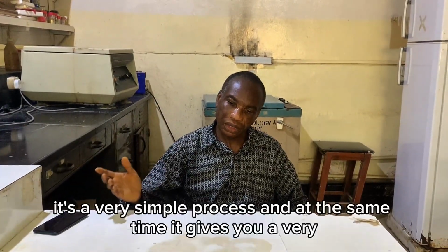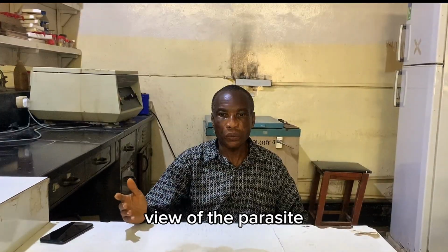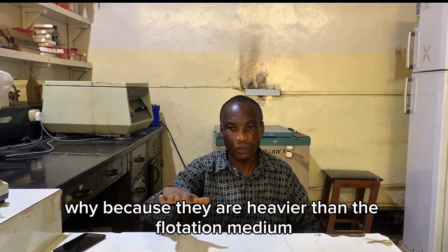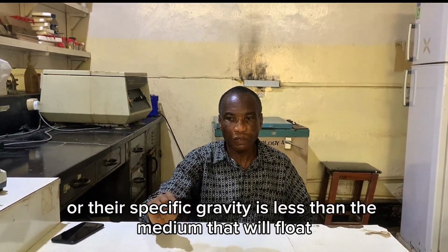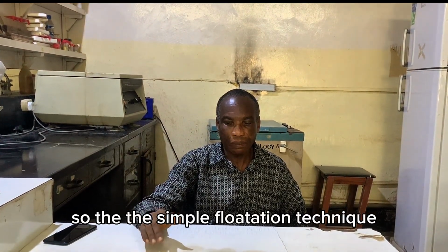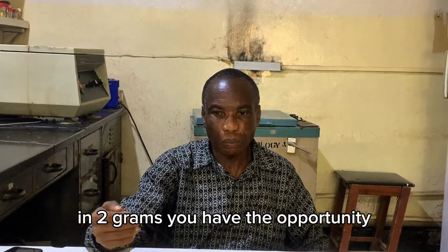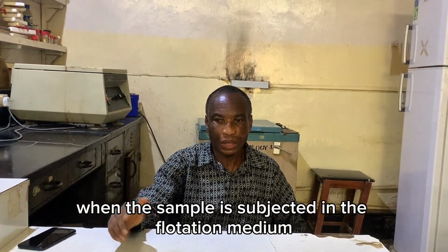It's a very simple process, and at the same time, it gives you a very clear view of the parasite, because particulate matter present in the fecal sample will not float. Why? Because it is heavier than the flotation medium. It will sediment. So it's just your parasites that are less heavy, or whose specific gravity is less than the medium, that will float. So the simple flotation technique is a very good method to concentrate parasites, even when the parasitemia might be low. In 2 grams, you have the probability of seeing the parasite when the sample is subjected to the flotation medium.